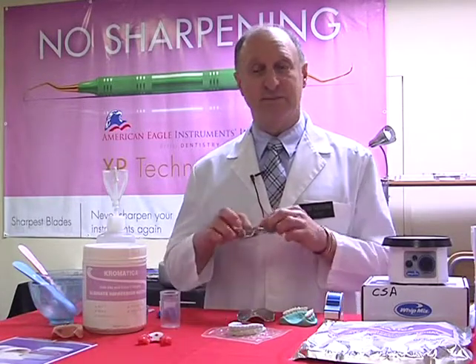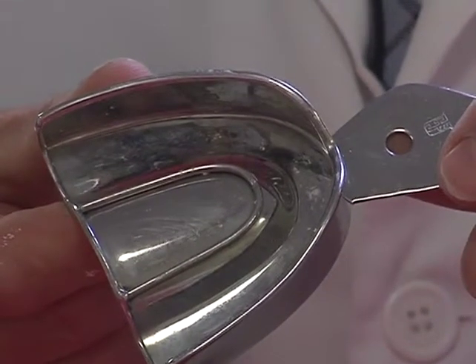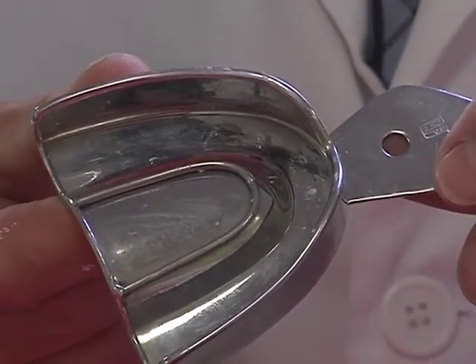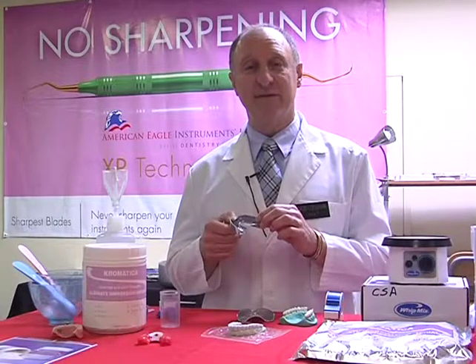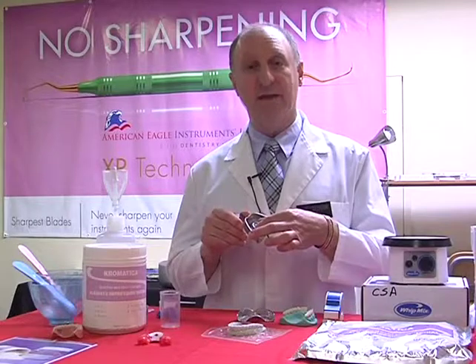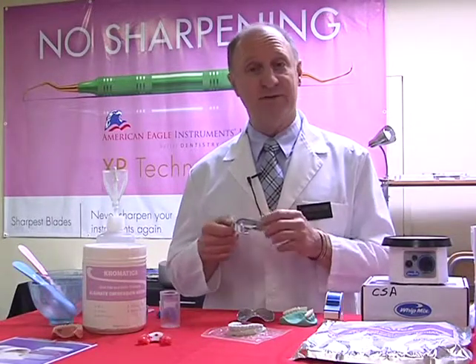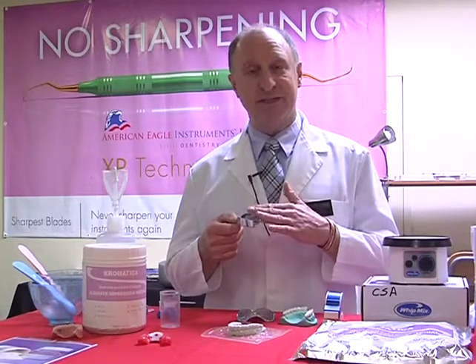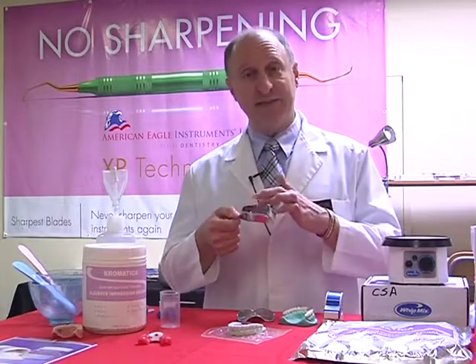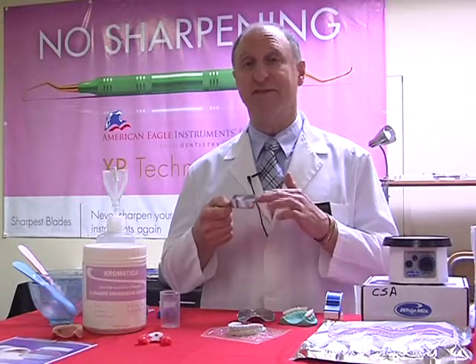Compare that to the solid impression tray. The solid tray, which a lot of people don't like using because they thought it doesn't hold or adhere the impression material as well as the perforated tray. Actually, about 5 years ago, the manufacturers made the rims around and also internally thicker, so it actually gives as much, if not better, adhesion than the perforated tray. When we put the impression tray inside here, the material inside here, the alginate, and compress it, it produces a much more compressive impression known as a muco-compressive impression.